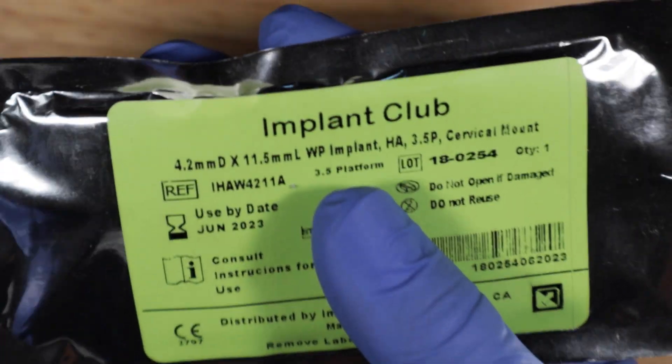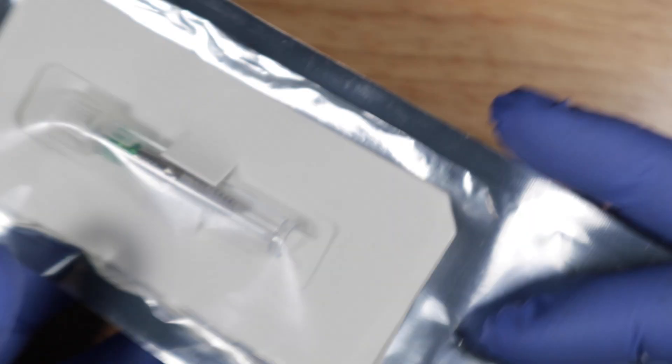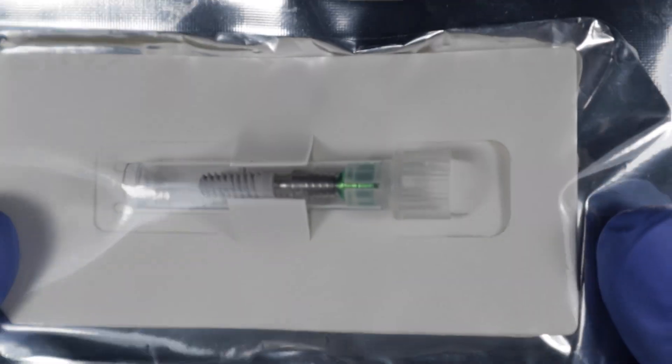So this is the Implant Club implant. In this video I'm going to unpack it and show you what's inside.